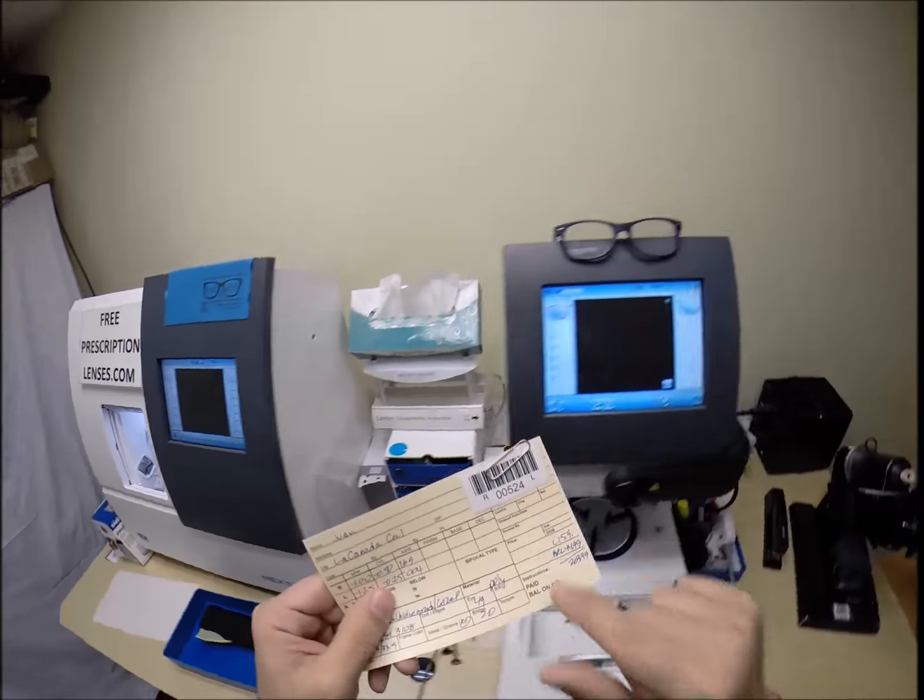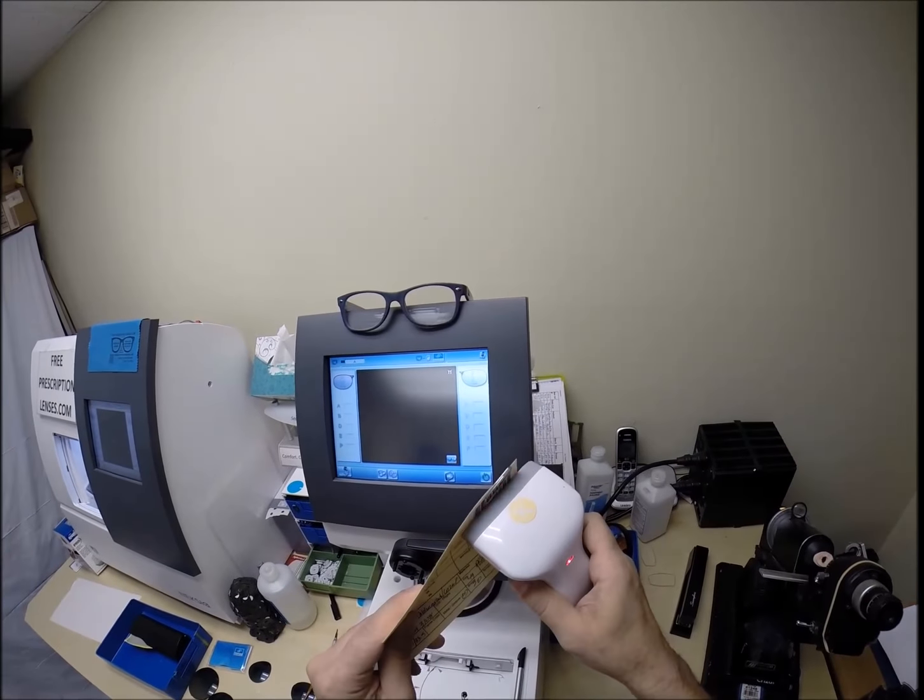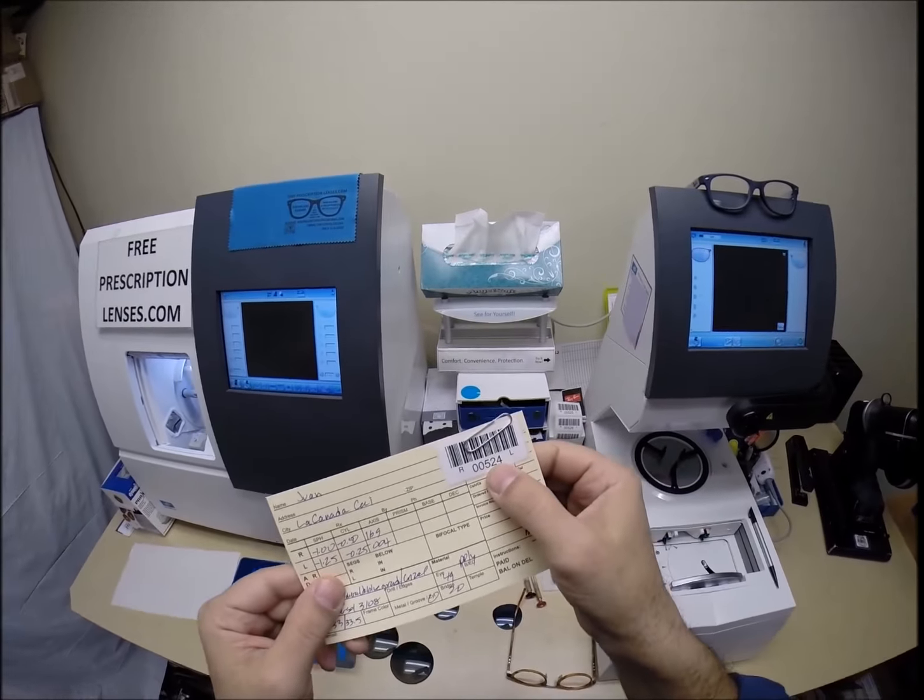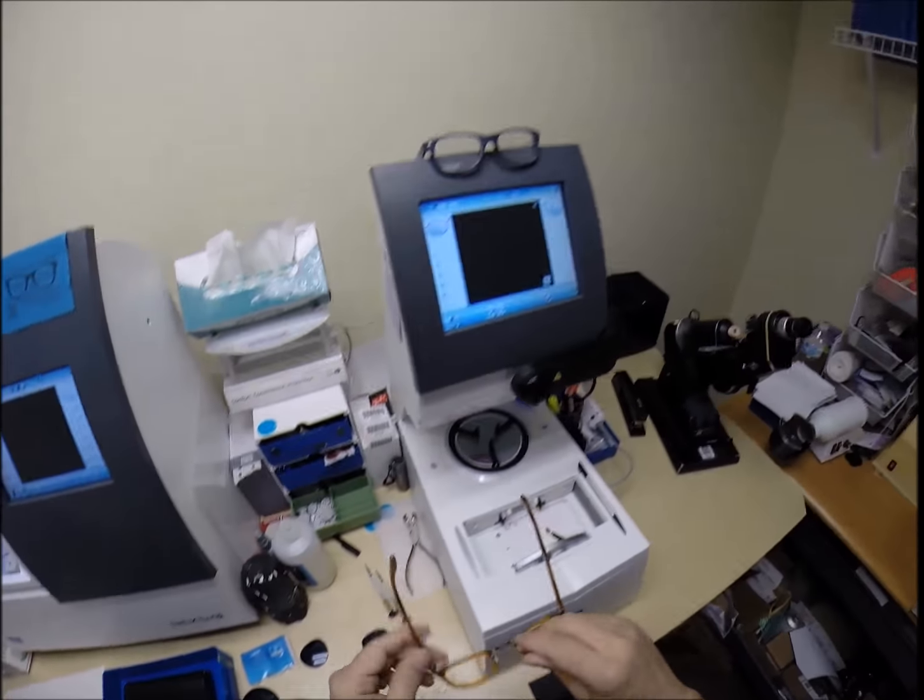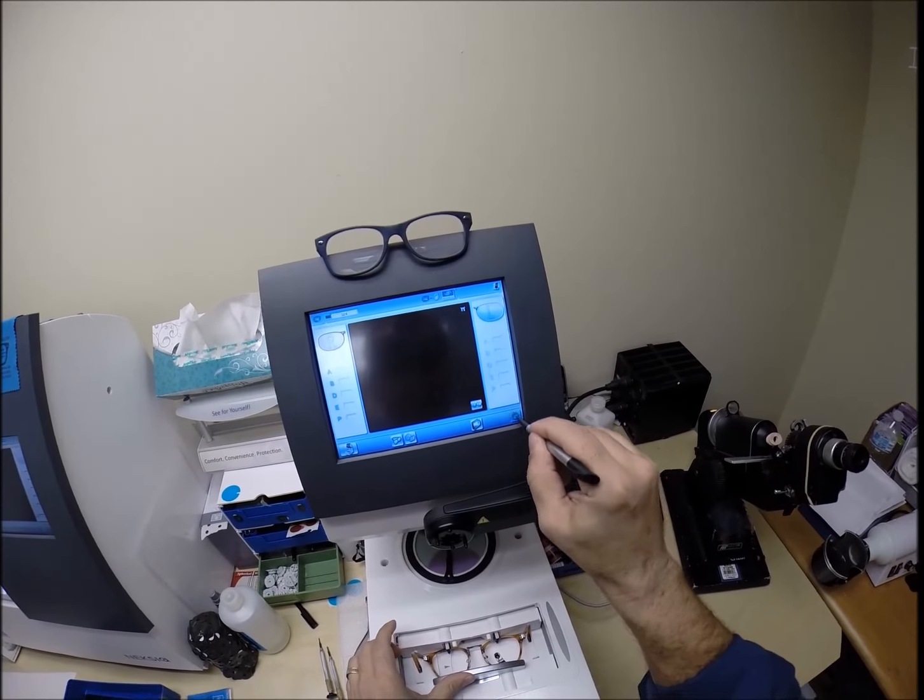First of all, I need to program this shape into the computer to store it in the database. So years from now, if you ever need new lenses for this frame, you are secret agent 524. I can just cut the lenses and mail them directly to you. Let me go ahead and hit start.